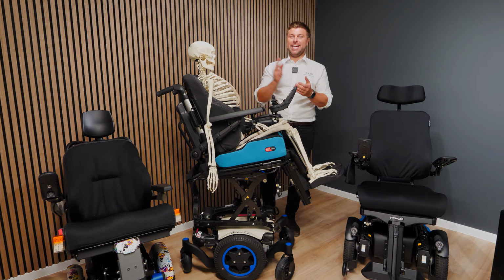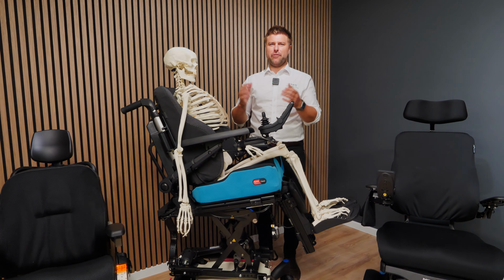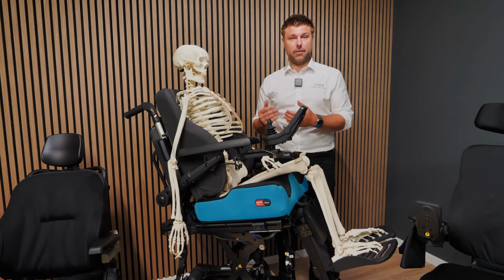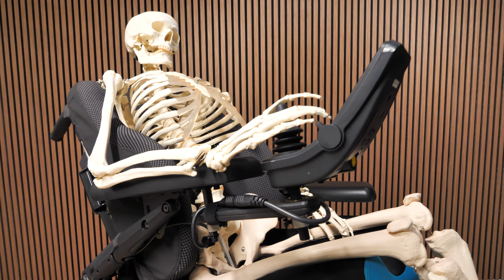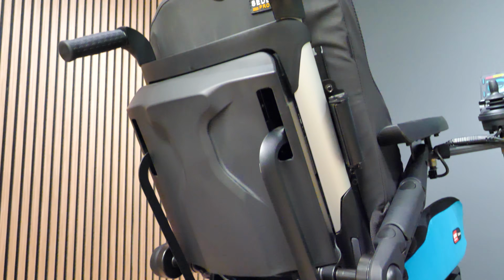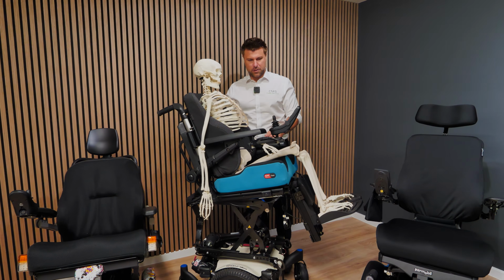Okay, number 3 is backrest angle. This actually coincides with provision of backrest as well, so I will touch on that a little bit. Backrest angle can also have a significant effect on how we sit in the chair and also our reach, or our ability to control the joystick. You're going to get bored of me talking about posterior pelvic tilt and kyphosis, but the effects are very consistent, depending on your spinal profile, of course, and your condition.